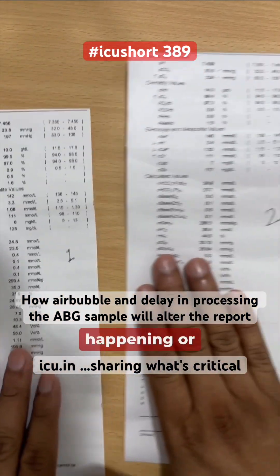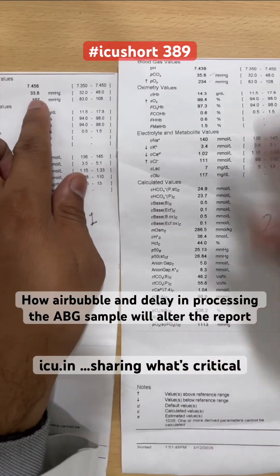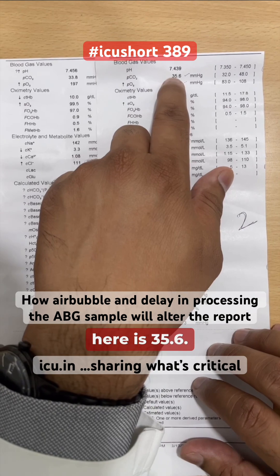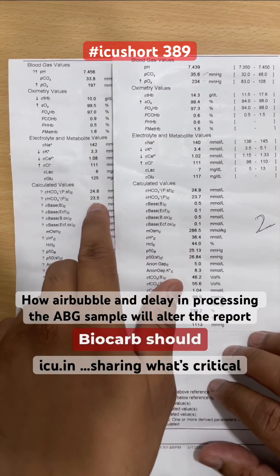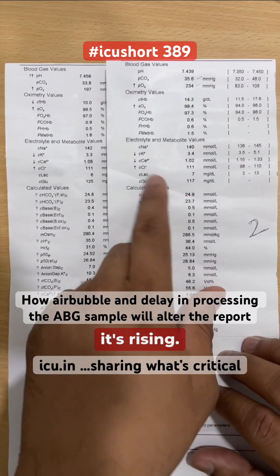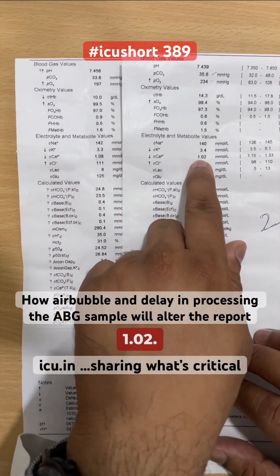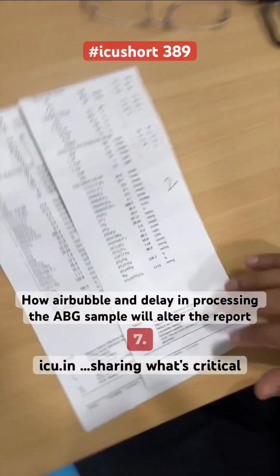Let's see whether these changes are actually happening. Because of the air bubble, PO2 is 234 in the compromised sample versus 197 in the correct one. PCO2 rose from 33.8 to 35.6. pH dropped from 7.45 to 7.43. Bicarbonate, which should decrease with metabolic acidosis, is 23.5 versus 23.7 — it's actually rising slightly. Potassium increased from 3.3 to 3.4. Calcium dropped from 1.08 to 1.02, showing hypocalcemia. Lactate increased from 6 to 7.